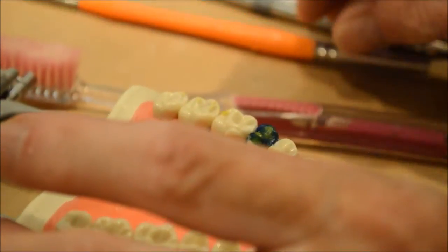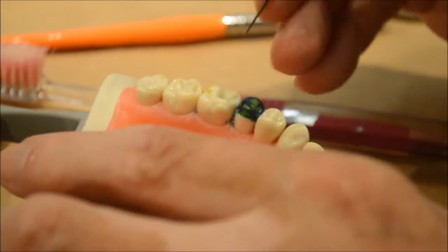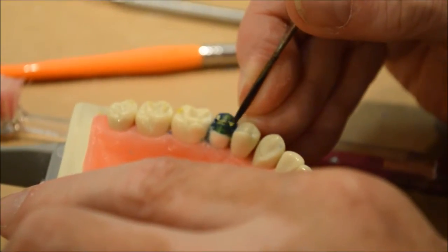Okay, so now I'm going to try and put some triangular ridges in and they're in red. What I want to do is make a little bit more room for them in here, so I'm going to take some of this out.